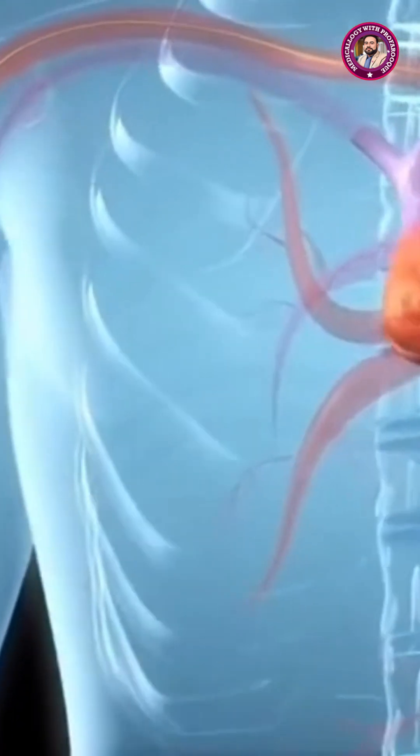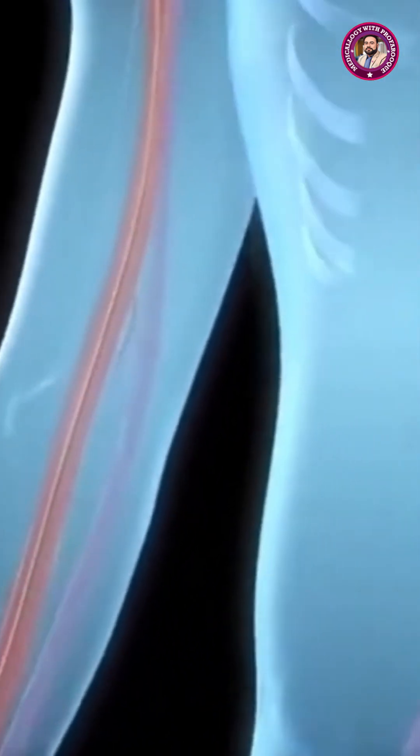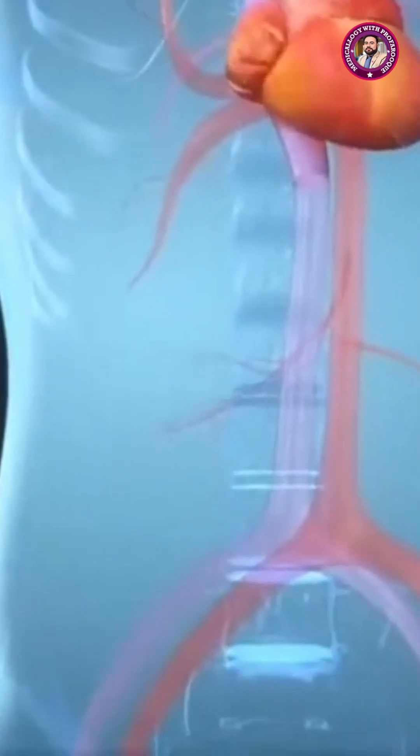A thin, flexible catheter is then slid over the wire and guided up to the heart, all under continuous imaging using a special x-ray machine called a fluoroscope.